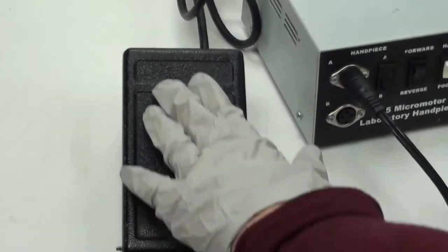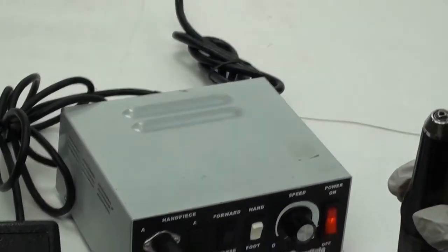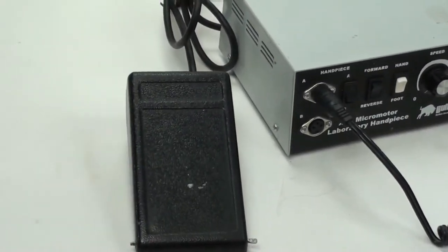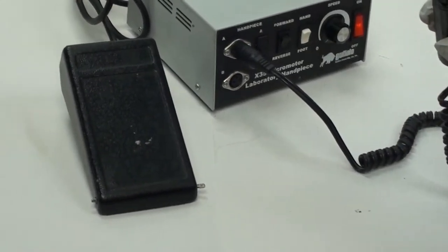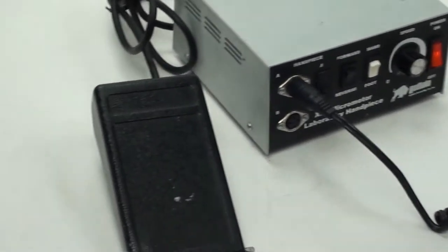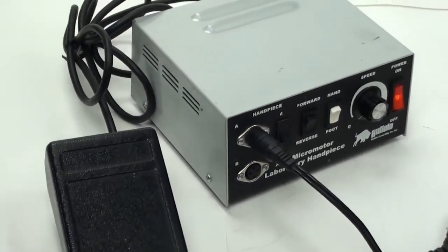The module and the pencil grinder are in great condition. The foot pedal is the only problem with this complete product. If you have any questions, please visit us at mycyberoffice.com or my eBay page at mycyberofficeid. Thank you guys for watching.